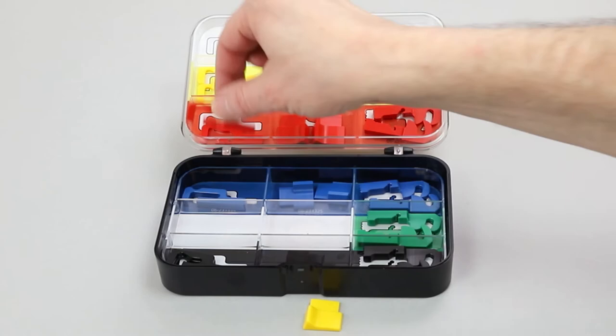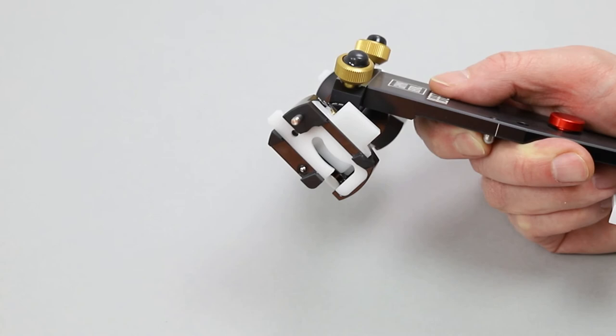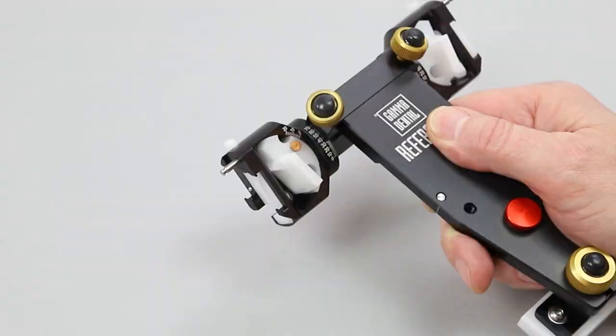A so-called programming set is optionally provided. By delivery, the articulator is equipped with white sagittal guide elements, radius 18 millimeters, and retrusive posterior guidance characteristics, and the transversal element is straight.